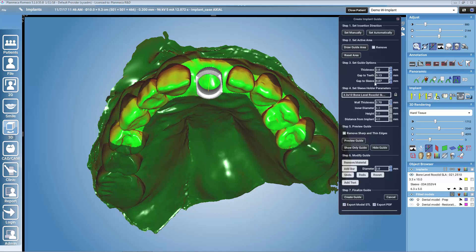We have here by default the parameters for our Creo 3D printer. In step four, we have parameters that define the plane area just around the sleeve. Some parameters are locked because they define the hole for the sleeve and should not be modified unless you are an advanced user, but they can be unlocked from the small lock icon. The wall thickness is the only parameter we can safely modify — it defines how thick the area of the guide around the sleeve will be, and is generally recommended to be a bit higher than the thickness of the whole guide to get more strength around the implantation spot.